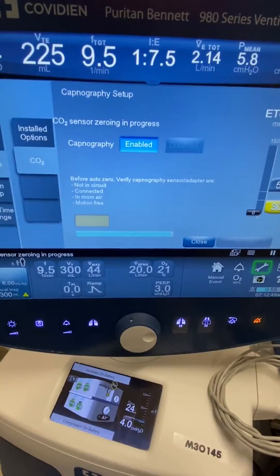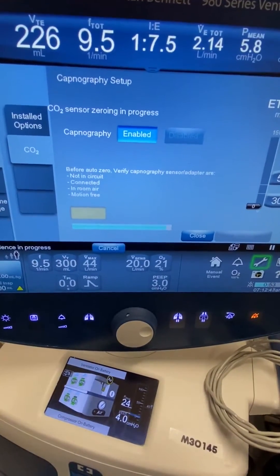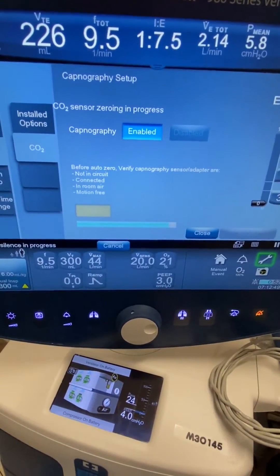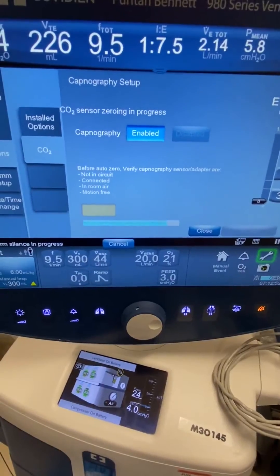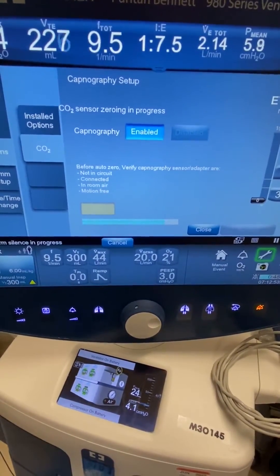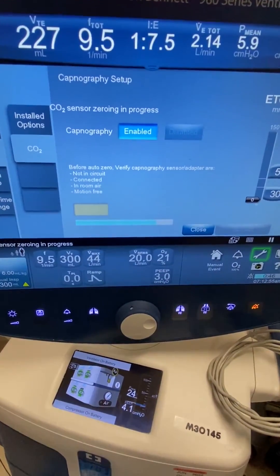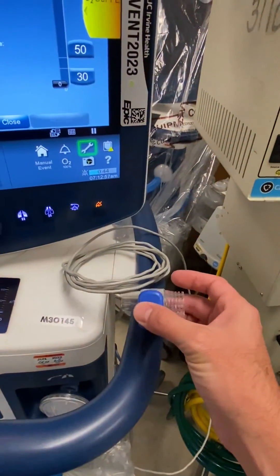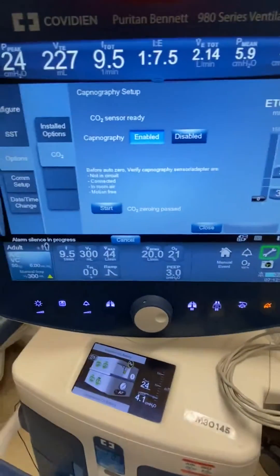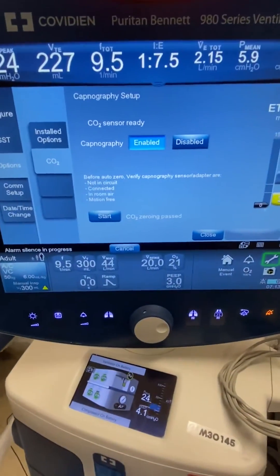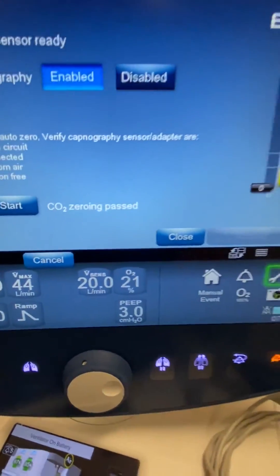If it fails the first time, more than likely it's just because that sensor hasn't warmed up yet, so if you repeat it, more often than not it's going to pass again. Other reasons it may fail is because you're moving the sensor as it's trying to zero, and that could throw it off as well. You can see how it says zeroing passed.